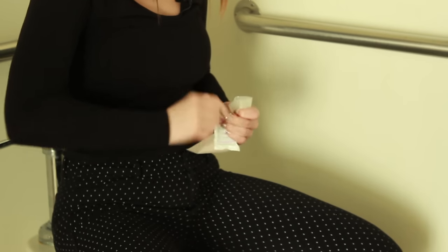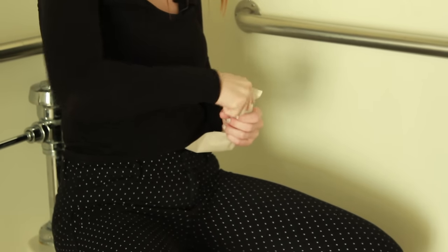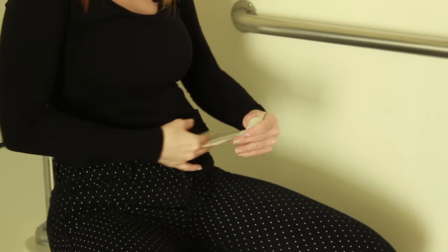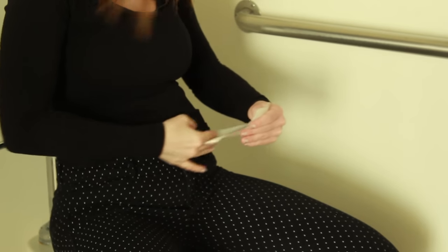Some people like to use a lubricating deodorant so the next time you empty your ostomy pouch it is easier. Aim your outlet up and just put it in. Once you're done, throw this away and work the lubricating deodorant up towards the top of your pouch so that it lubricates the inside of the ostomy pouch.